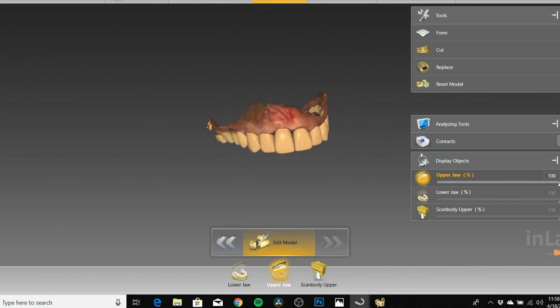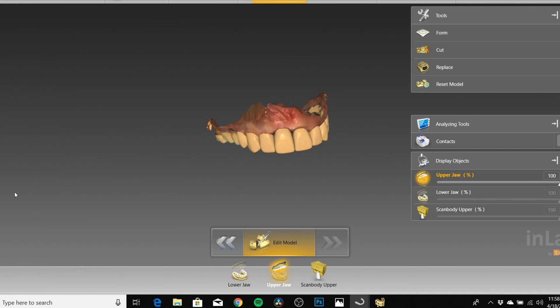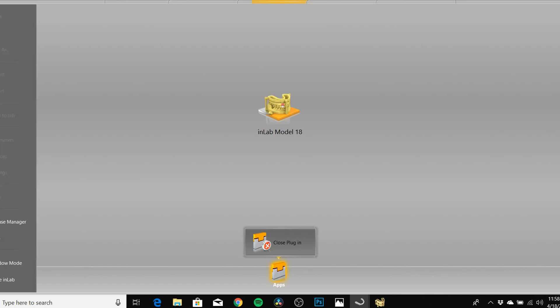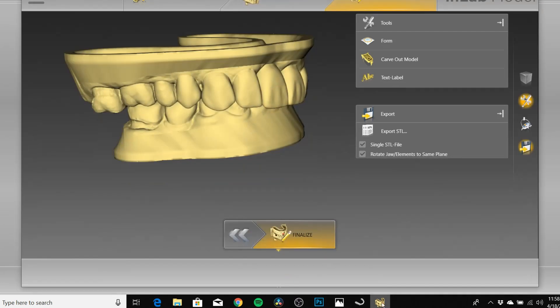From here you're gonna go to the Start tab in the inLab software, go over to Apps. As I mentioned, I don't know if this is an option with the CEREC software or CEREC Premium — this is just how things are done on the lab side. We're gonna use the inLab module for creating models, which you'll find in the Apps section. Go over to InLab Model and click that.